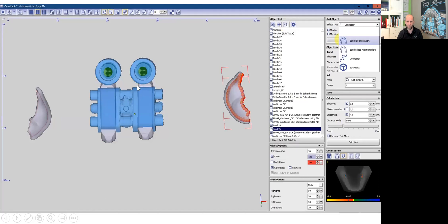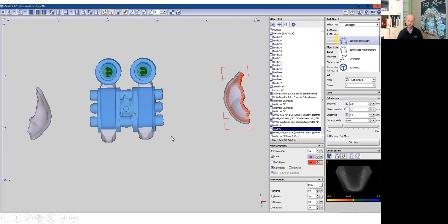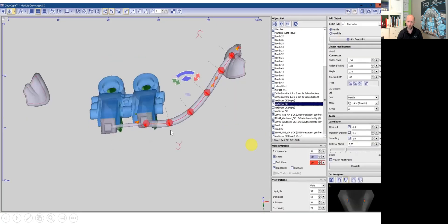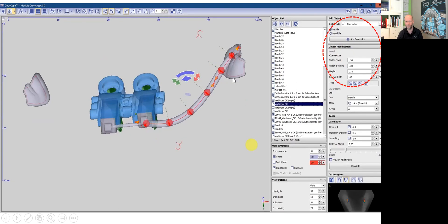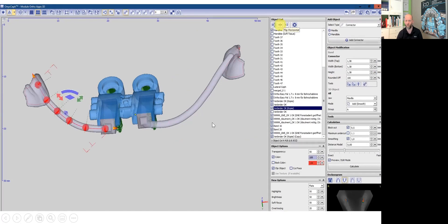So this is now what we have. We have the tabs, abutments, the connectors, holding the expansion screw and we have the molar pads. So now we need another two connectors to connect the expansion screw and the molar pads. So we mirror it again. I use some different numbers here. You can change it to your personal preference.